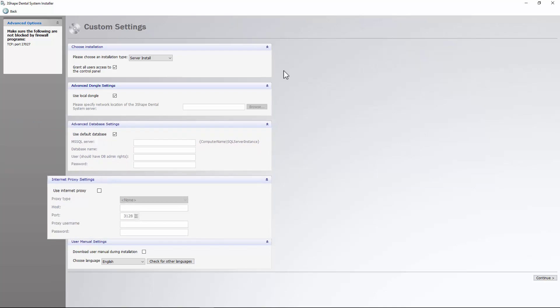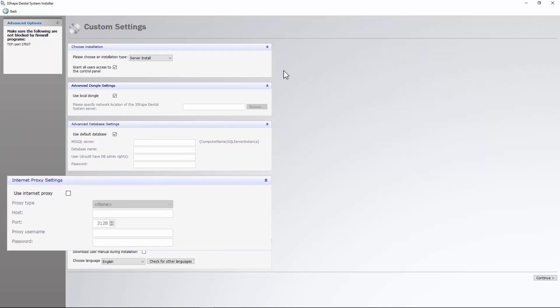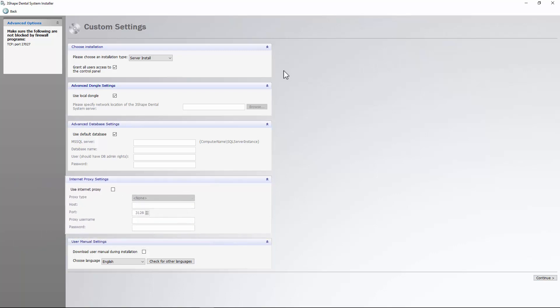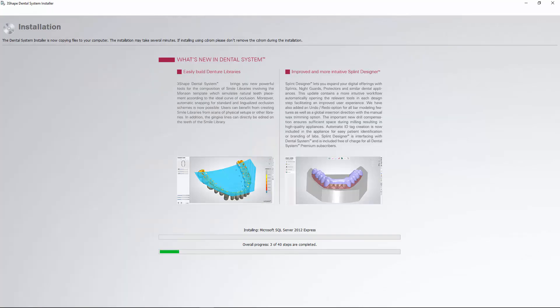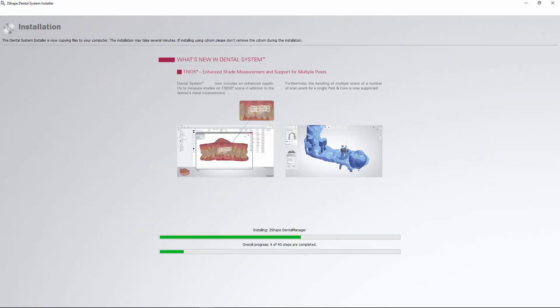Most systems do not use proxy servers — please verify with your system administrator. Click Continue to proceed. All software and the order database are stored locally on the server PC, with the drives mapped as network drives so they can be seen by the client PCs.